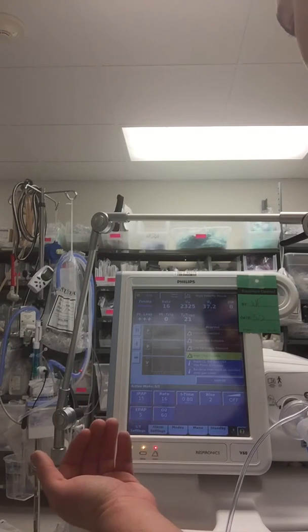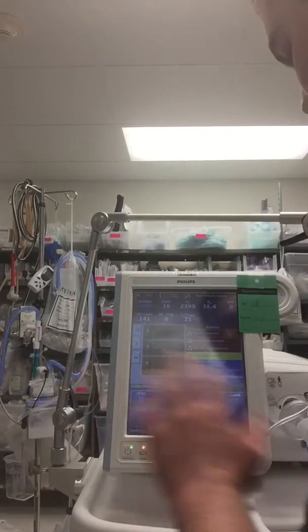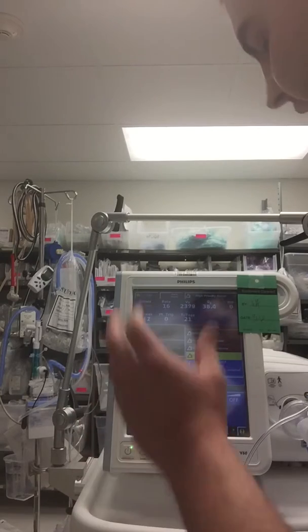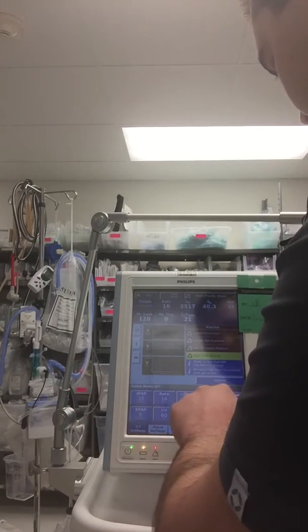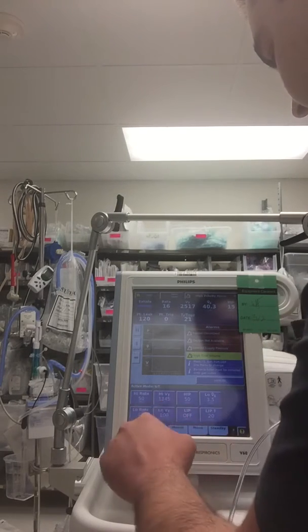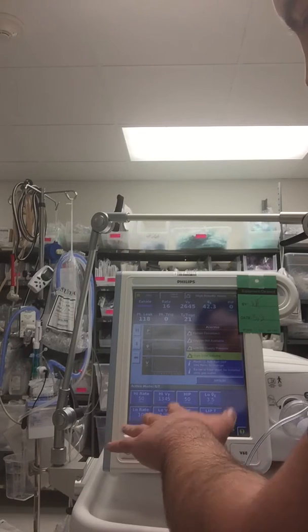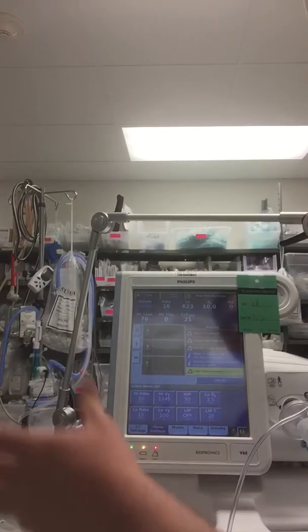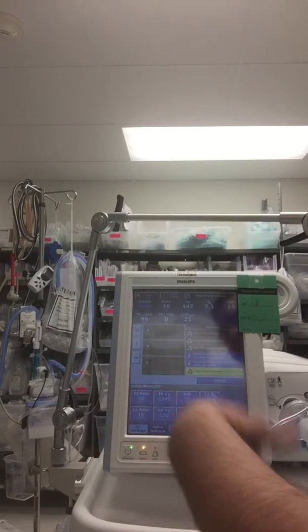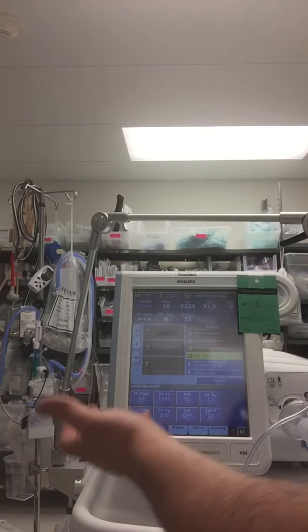So let's see here. And then the tidal volume up here is really high just because it's not hooked up to an actual patient, it's not sealed. Oh, we'll set alarms first. So right now the rate is 10 breaths per minute. So if they start going apneic, they'll hit 9 breaths per minute, and then it'll sound. And the same with 50. If their rate gets that high, it'll also sound.